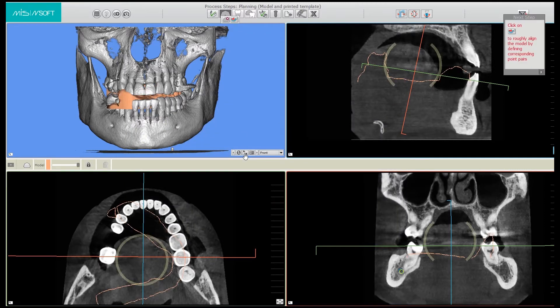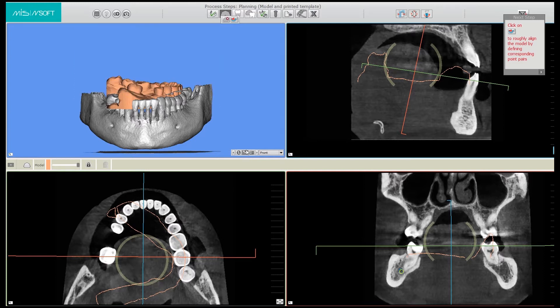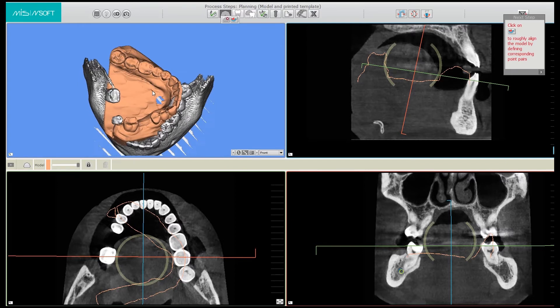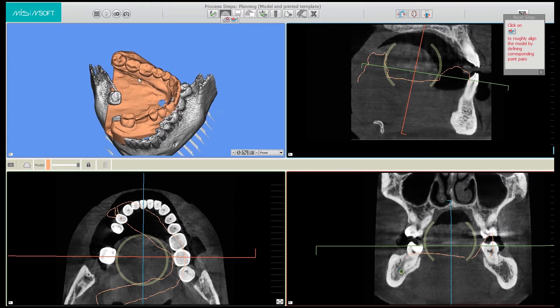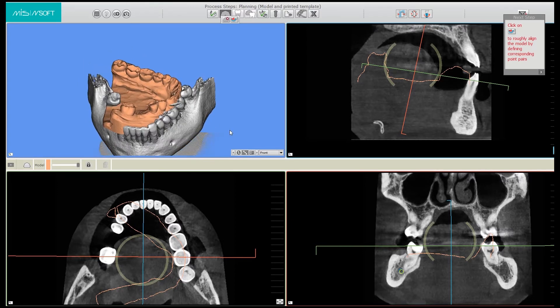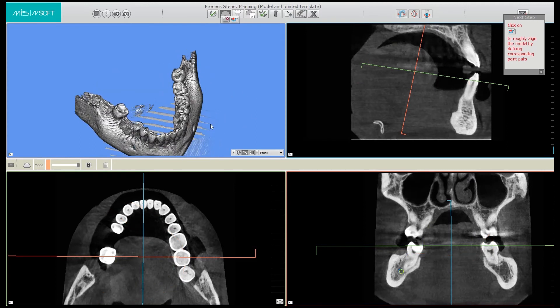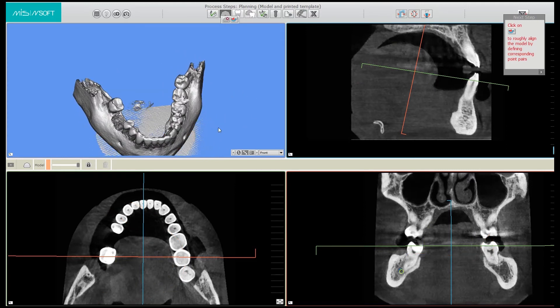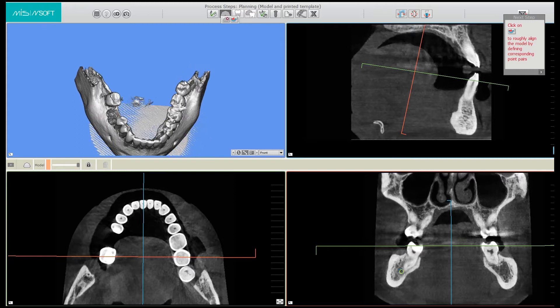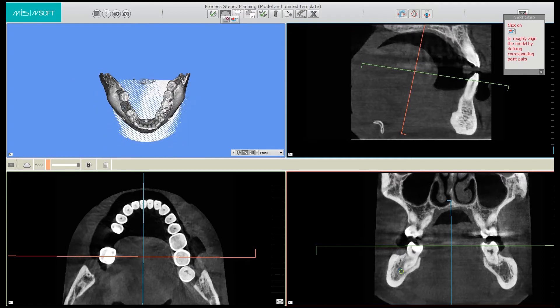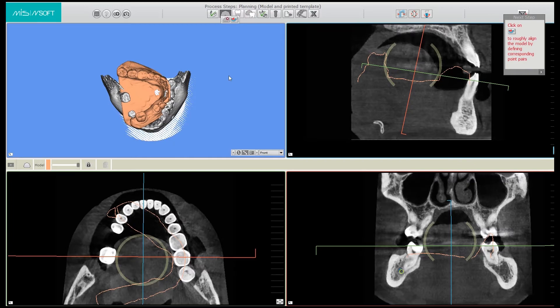The next thing we're going to click on is the 3D view. Then we select the upper jaw and remove it. You can now see that the upper jaw was removed but all the occlusal areas of the teeth remain. Had the jaw been closed, we wouldn't be able to see the occlusal area of the teeth clearly. This is very important to us in this step of the process. I'll now put back the model and we can move on to starting the matching phase with the semi-automatic system.